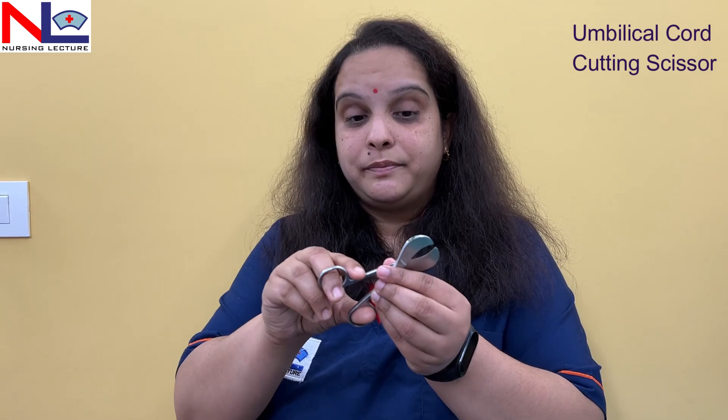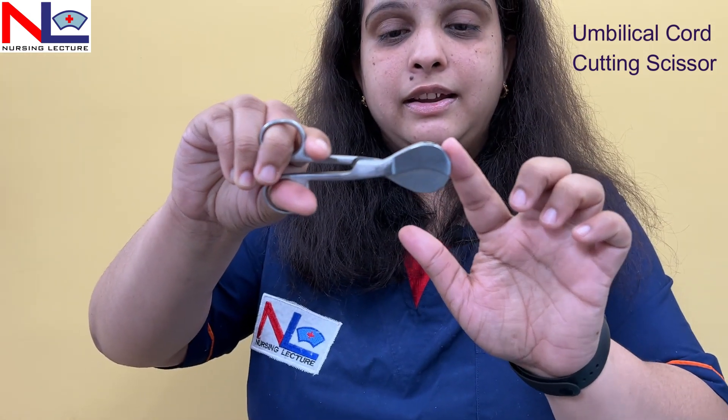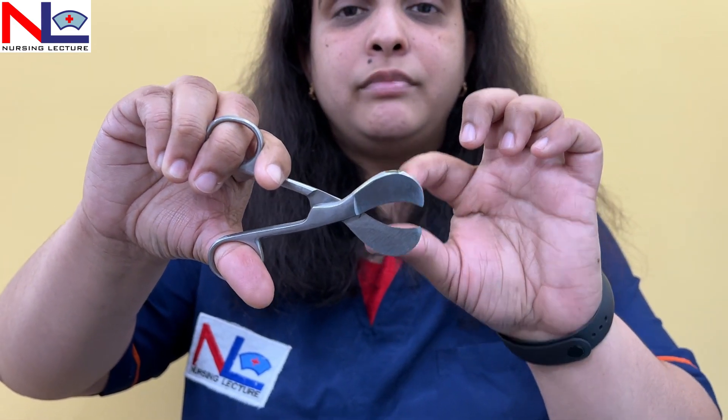The last instrument is the umbilical cord scissors. As the name suggests, it is used to cut the umbilical cord. It is a specially designed scissors where the tip of the blade gives a coin-like appearance and the blades are somewhat broader. Straight scissors can slip off while cutting the umbilical cord because the cord contains slippery Wharton's jelly covering the vessels. To avoid slipping, we use this umbilical cord scissors so the cord will not slip off and can be cut with ease.